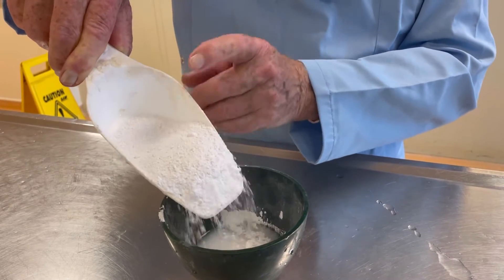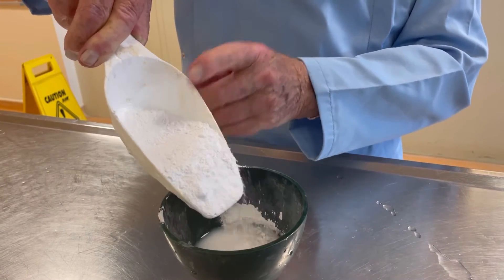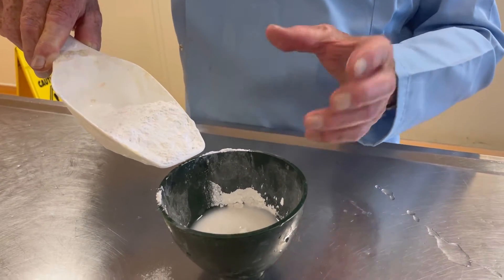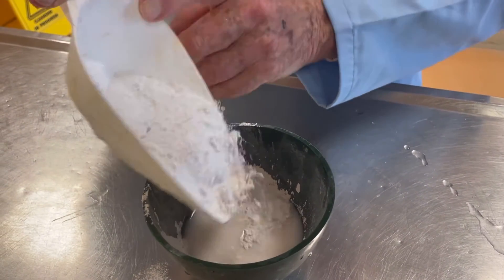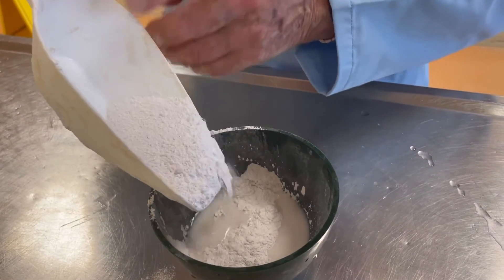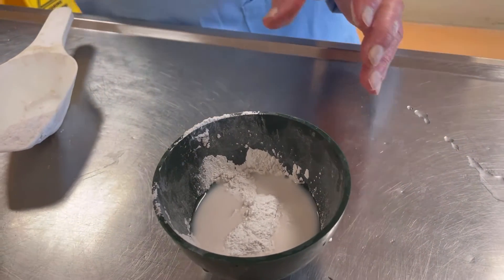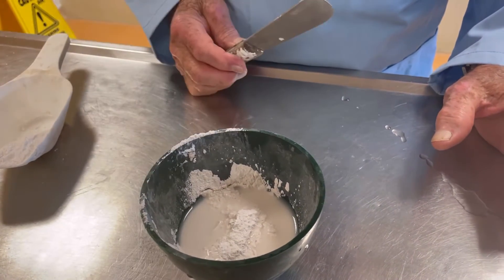Be patient, because it's important that all those bits going in are wetted as they go into the bowl. Now, what we're looking for is this: you see the way there's plaster on the top and it's taking time to go through? That's because you've nearly got to the state where you're going to mix it. You're waiting until there's dry plaster that's not absorbing quickly — like that. Let that absorb into the water until it goes dark as it gets saturated.